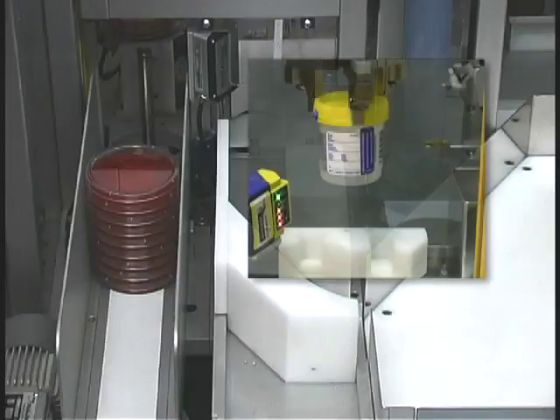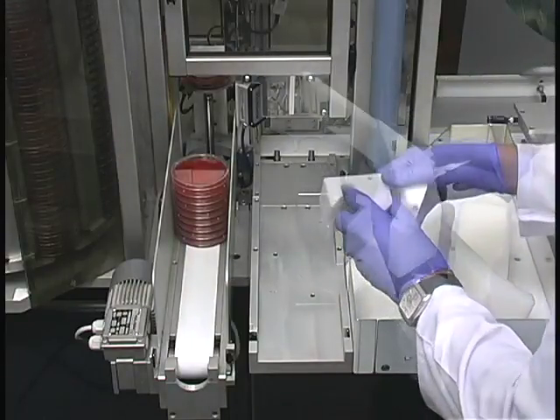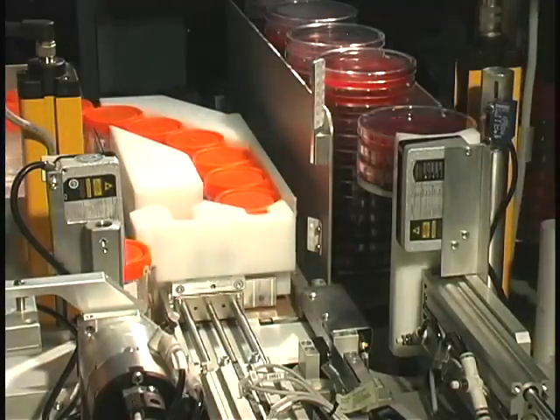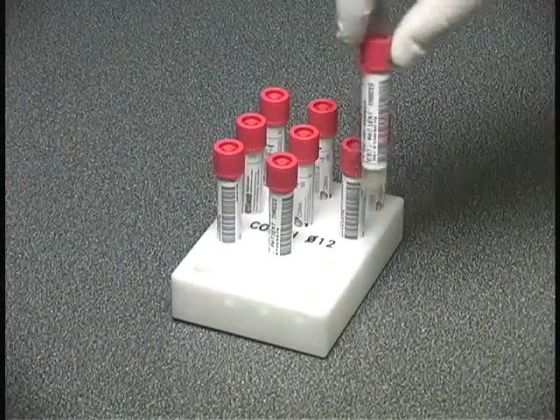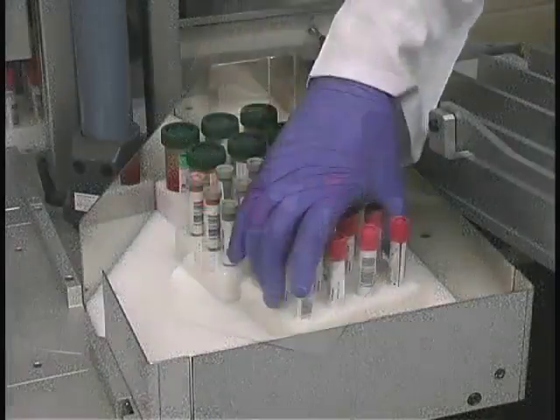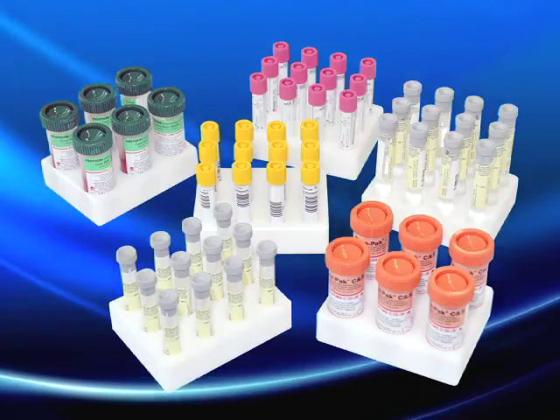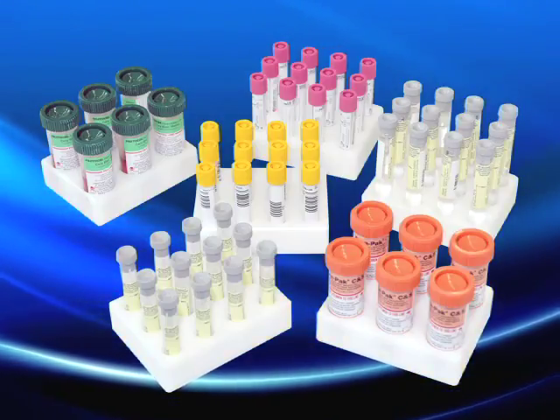When processing urine cup containers, you need to place the Teflon specimen cradle and guide rails onto the feeder conveyor belt and the specimen exit aisle respectively. Once processed, the Teflon cradle and guide rails forward specimens along the exit aisle and into the specimen holding bin. When processing specimens not collected in a large screw cap container, you must load them using Teflon pallets, which hold 6 to 12 specimens depending on the container type. When the conveyor is fully loaded, it holds 30 tissue or stool samples, or 72 specimens in Copan e-Swab, Copan Uri-Swab, Copan fecal swab, or BD Vacutainer in 9 Teflon pallets.